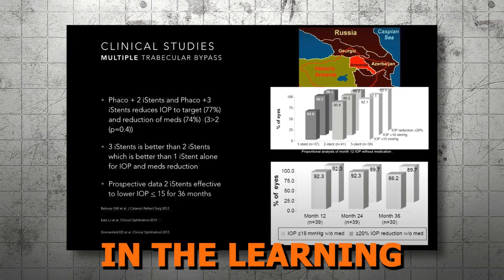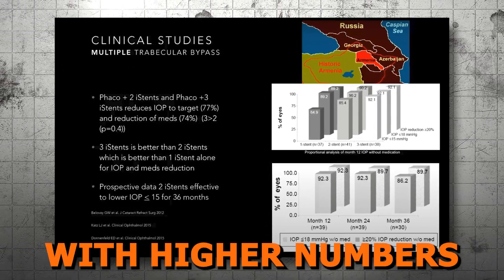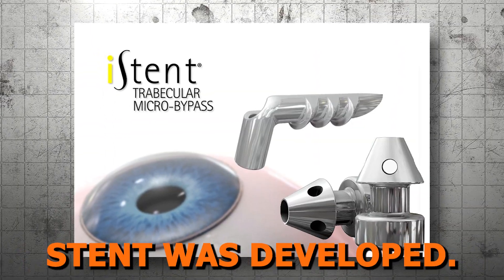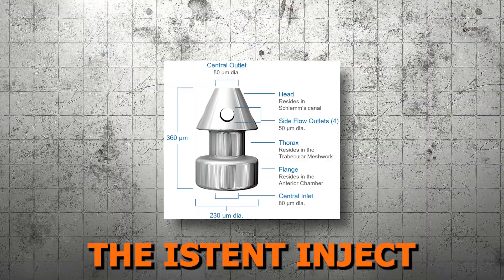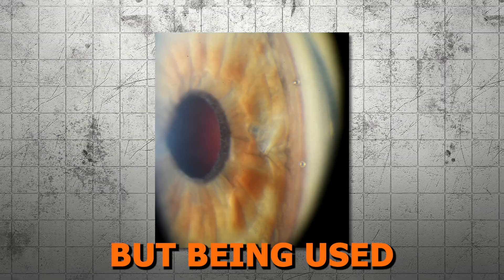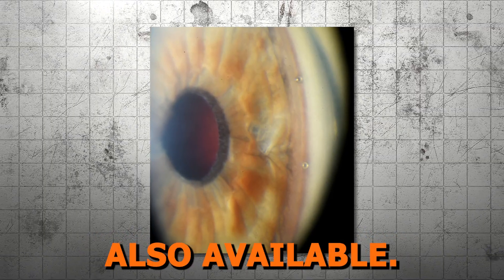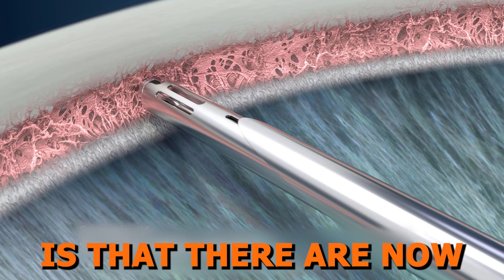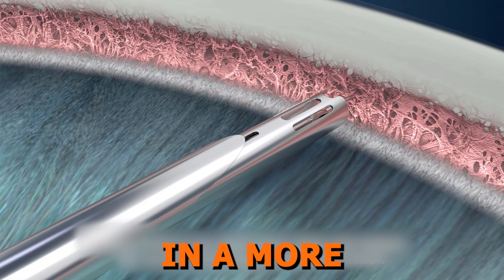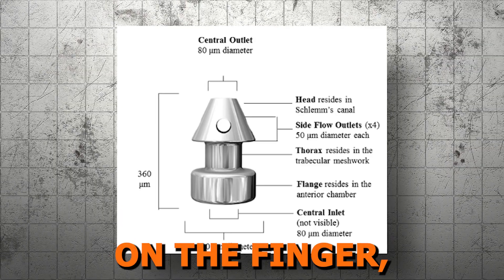Due to some challenges in the learning curve of the insertion with the 1st generation stent and research showing more efficacy with higher numbers of stents placed, the 2nd generation stent was developed. Next up, we have the iStent Inject and the iStent Inject W, also still available, but being used less widely now that the 3rd generation iStent Infinite is also available. The unique aspect of this device is that there are now 2 stents in one device, and the shape dramatically changed to aid in a more straightforward insertion. The iStent Inject looks like a speck of dust on the finger.